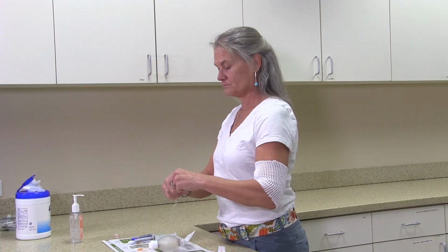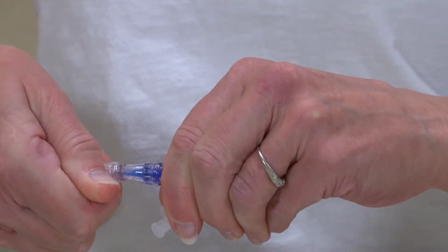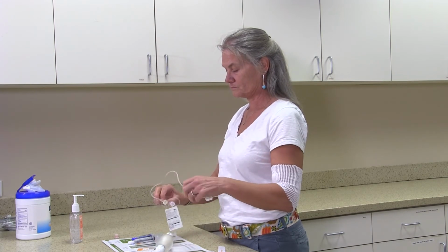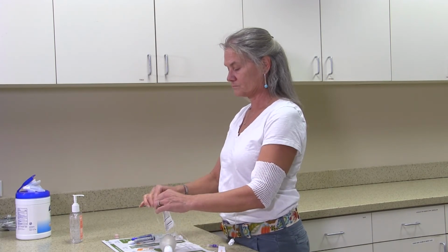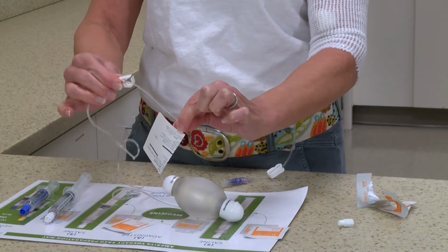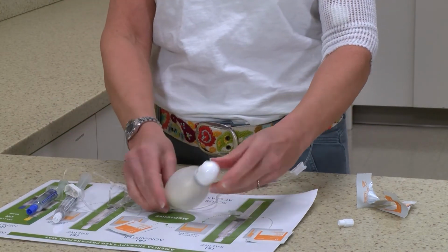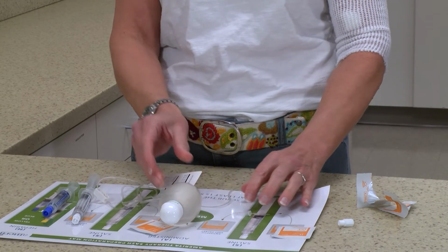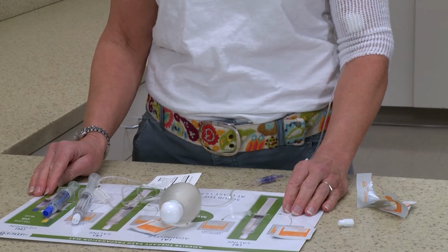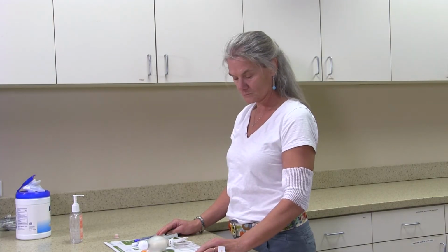Remove the end cap of the tubing and attach this to your injection cap and twist it until it is firmly in place. Once you have connected the tubing, then open the clamp on the elastomeric tubing. Note the time that you open the clamp, or watch the device for a few moments. Over time, it will begin to get smaller in size and feel softer, which means that it is going into your IV line. You can place this device in a pocket or a purse and go about your usual activities.